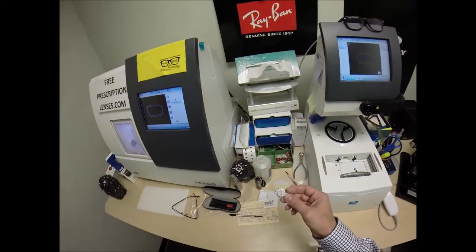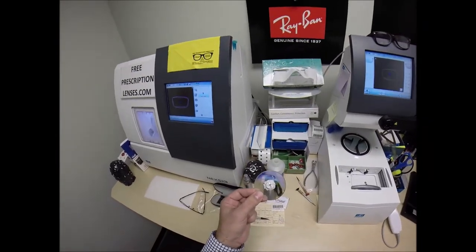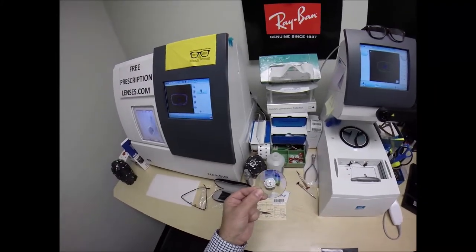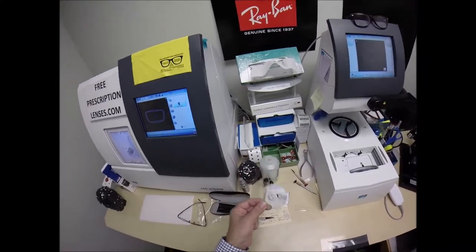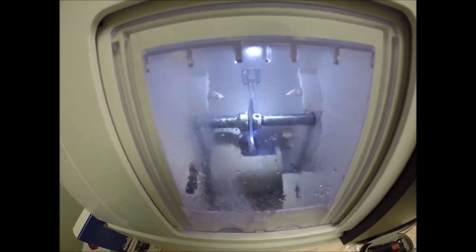These are high-impact ballistics-grade lenses. Don't worry, that's part of the lens that will be cut away. Your lens has a very strong scratch coating. They also have 100% UVA and UVB protection built into the lens. We know what the sun's harmful ultraviolet rays can do to your skin there in Beaumont, California. This is permanent and never needs to be reapplied every couple hours when you're in direct exposure to the sun. So you got the Transitions Extra Active Green. Now Transitions Extra Active are available in gray and brown for a certain price. The green costs $20 more because they're so new. Now you also have the Crizal Anti-Glare. Anti-Glare has three features in one. The first feature is it reduces glare when driving at night, particularly driving at night in the rain.